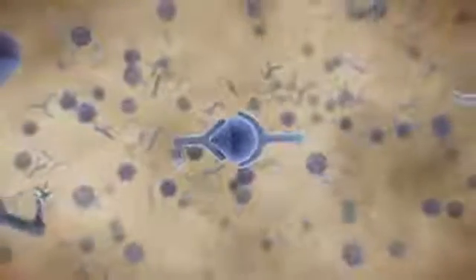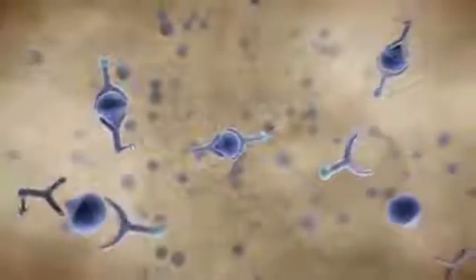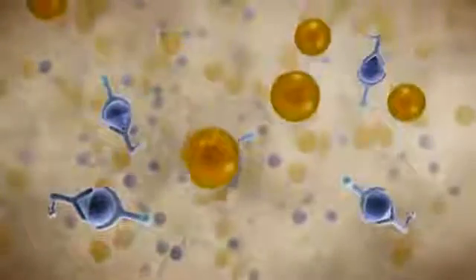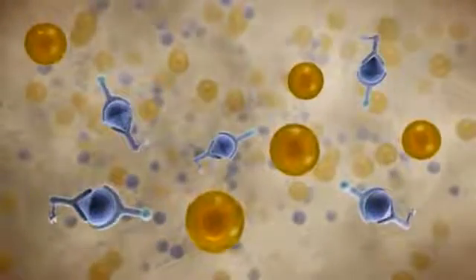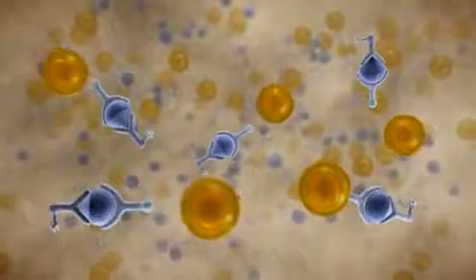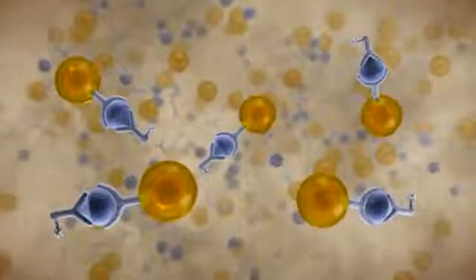In this example, the two antibodies form a sandwich complex with the antigen. Depending on the target analyte, competitive and bridge immunoassay principles can also be applied. Next, microbeads coated with streptavidin are introduced into the solution.